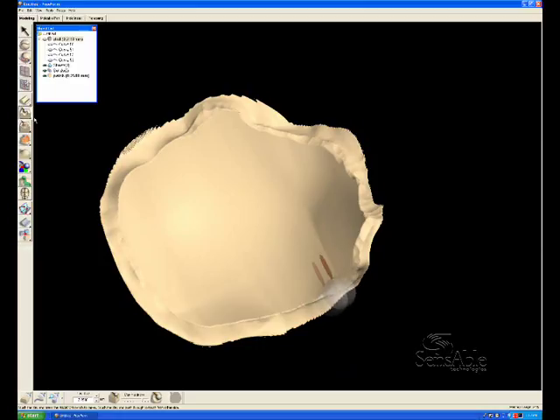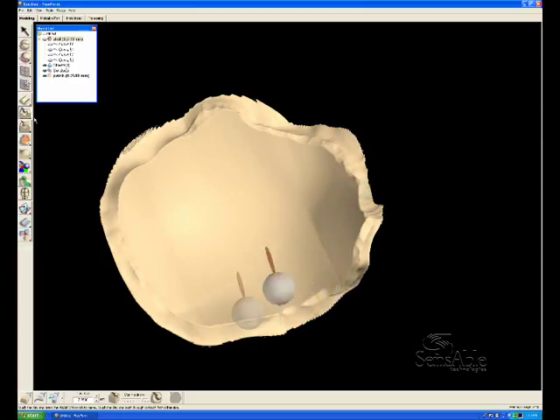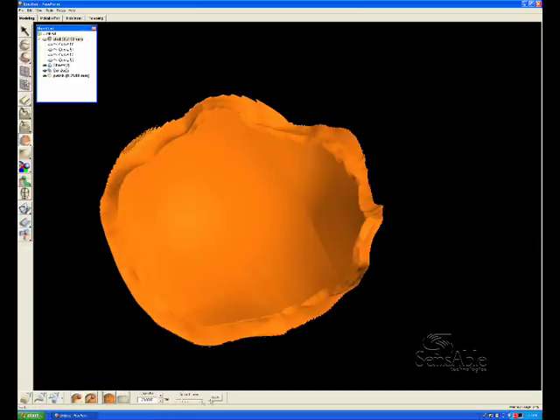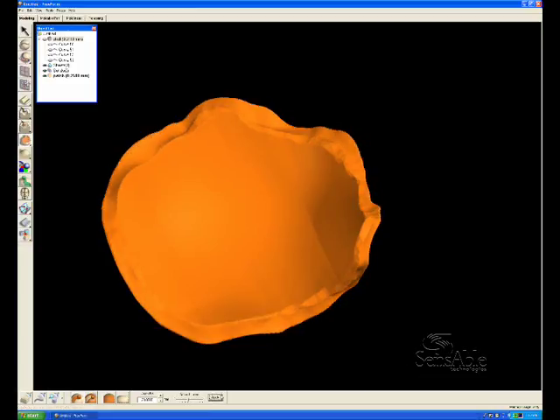So we carve those away. And then we go through a smoothing operation in order to clean up the noise right along the edge there that resulted from the boolean operation.